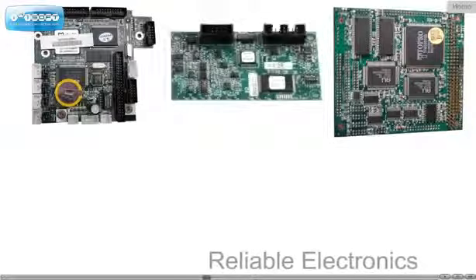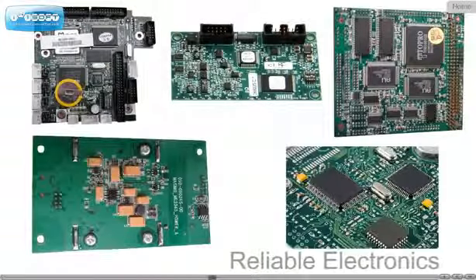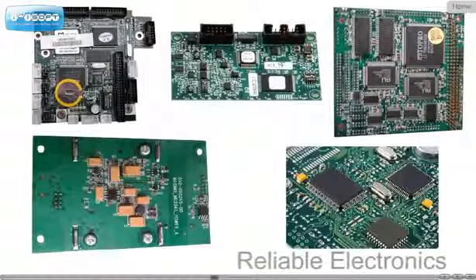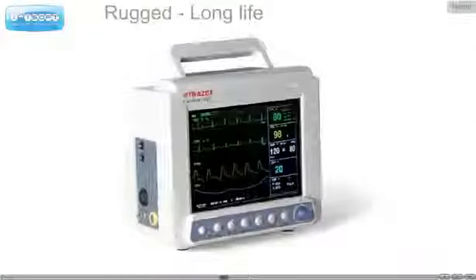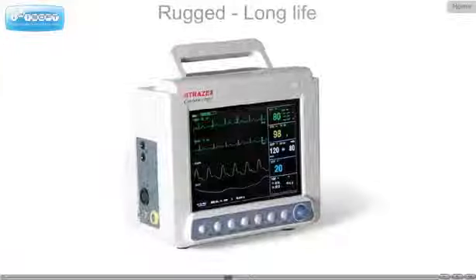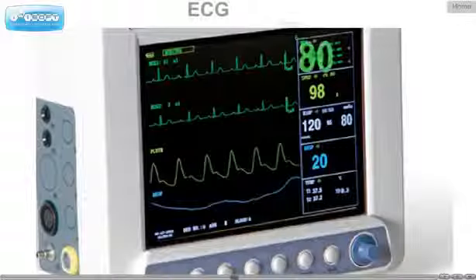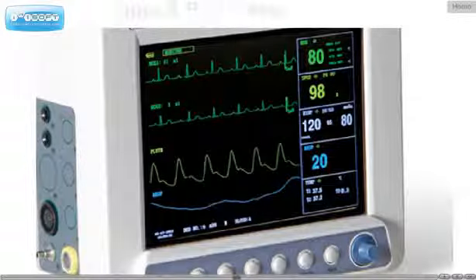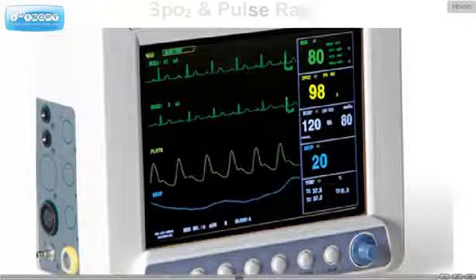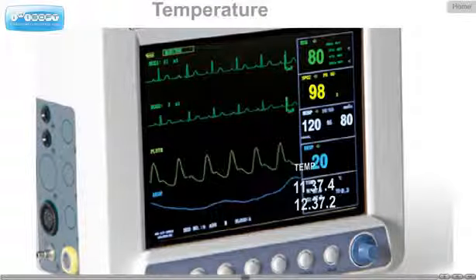The oximetry and NIBP modules are imported for reliable and accurate operation. Trace 8 is a rugged basic 8.4-inch 5-parameter patient monitor with ECG, SpO2, NIBP, respiration, and dual temperature.